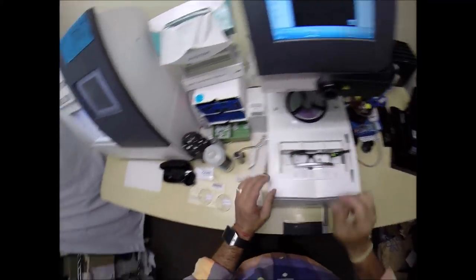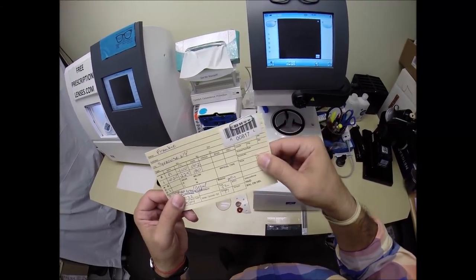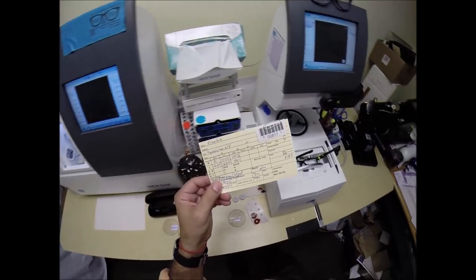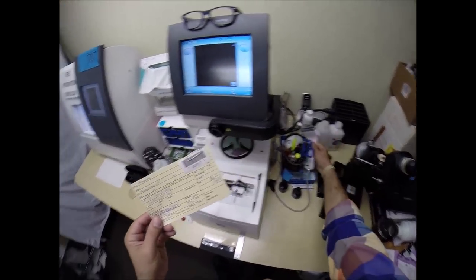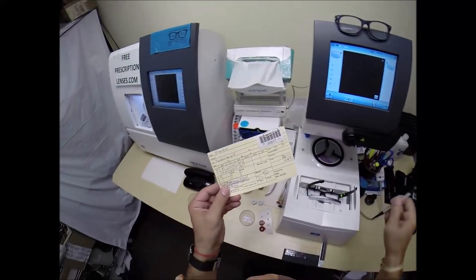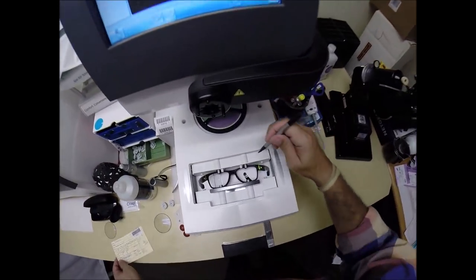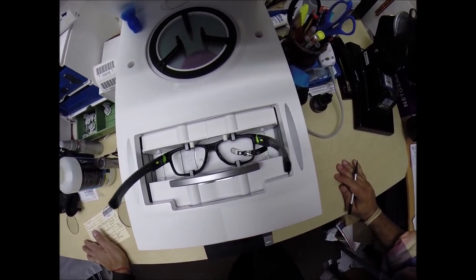I'm going to put it into the tracing element of my blocker, but first I need to program your order — installment 817 of my 325-million-volume series of making a pair of glasses for everyone in the U.S. Let me go ahead and enter this barcode into the system. What's nice is that years from now, should you ever need new prescription lenses for this frame, I can mail you just the lenses and show you how to pop them in, and you won't have to mail the frame back to me. Let me hit the start button. A little stylus is going to go around and trace the inside bevel of the right side of the frame before doing the same thing on the left.